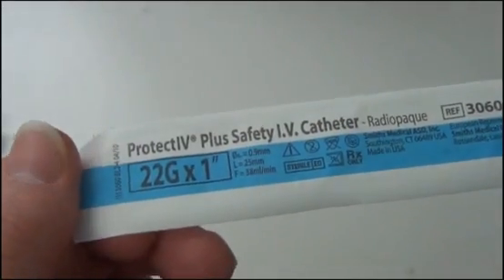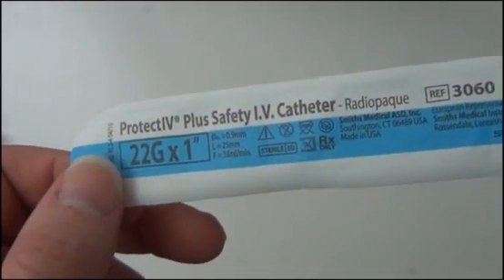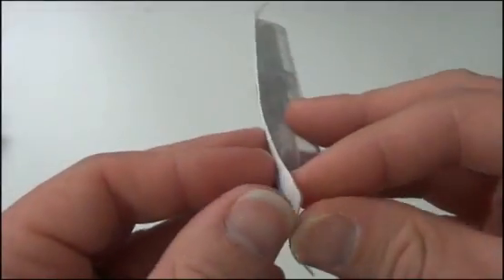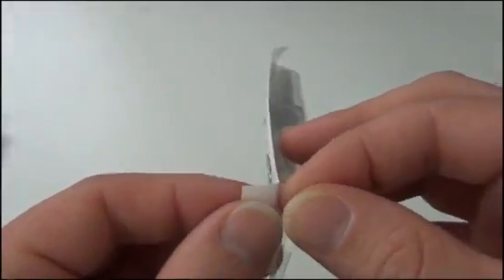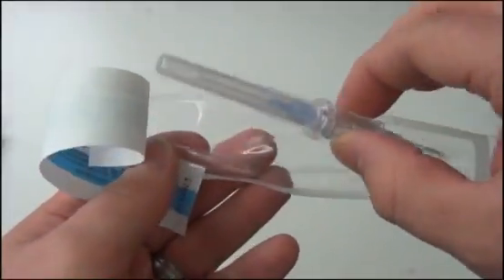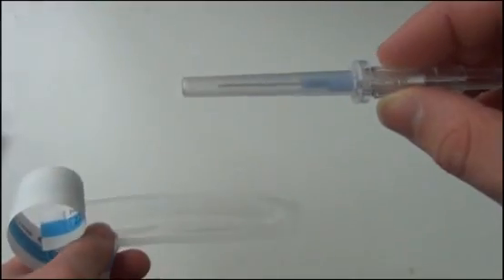So when you get the IV, of course, it's packaged sterilely. Starting IVs is aseptic technique. It's not necessarily sterile, but you do want to clean the patient off. And then when you open this, it is sterile inside, but you're going to be just using your regular gloves and everything. If I was doing this on a patient, I would have gloves on and everything.